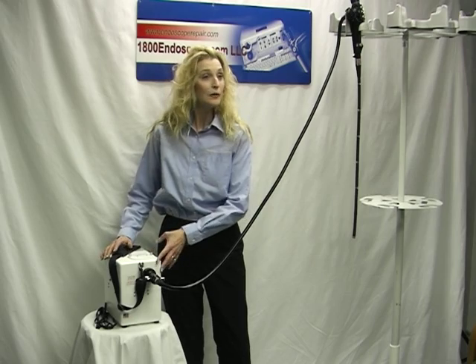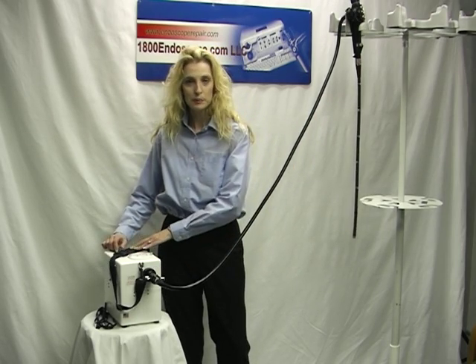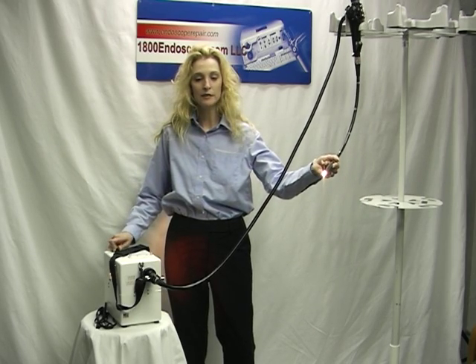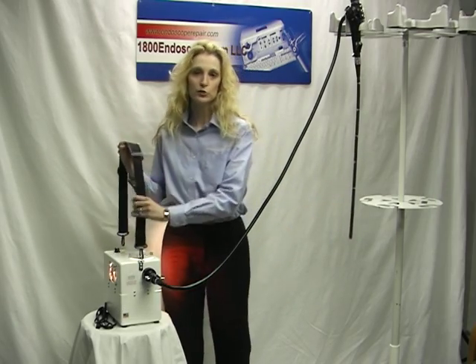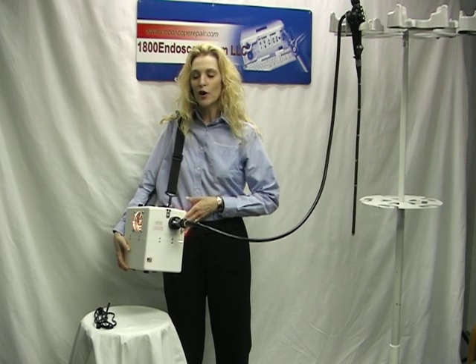The unit can be used with any fiber scope. The 1-800-LSP has three strengths of light: low, medium, and high. It includes a shoulder strap which makes it easy for you to carry this 8 pound unit around on the job.